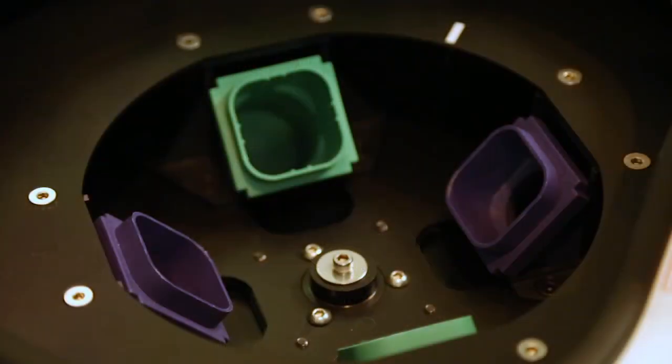It is always good to check to make sure nothing is in the centrifuge beyond the buckets. Nothing should be kept or stored in the centrifuge when transporting.